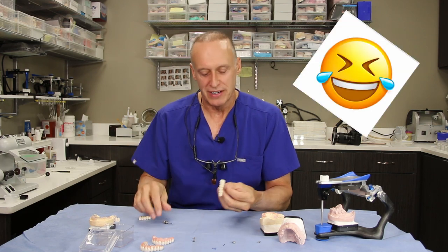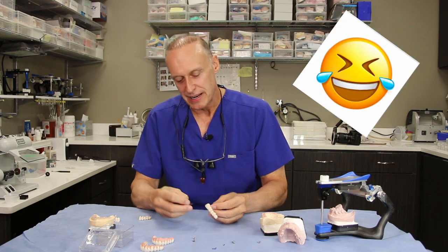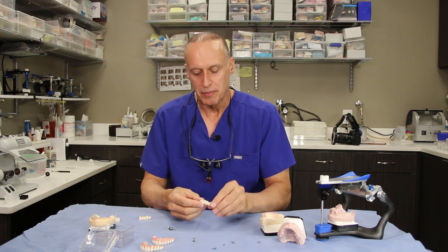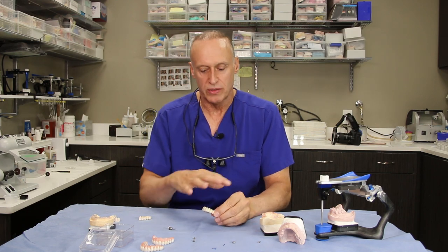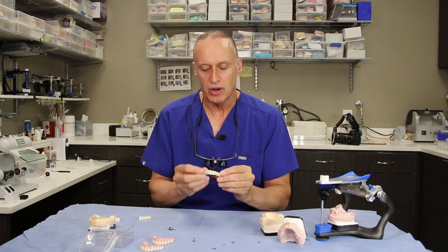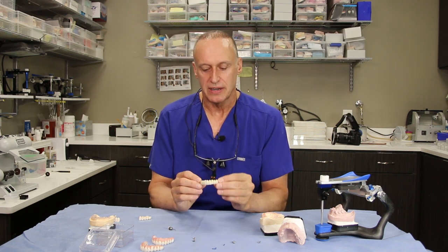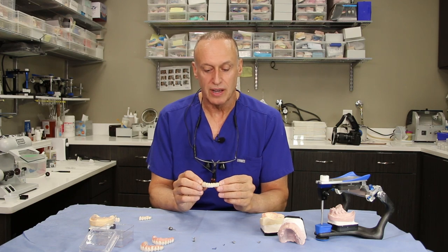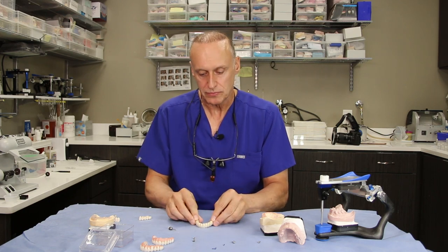I joke with the patients on the day I give them these that the Smithsonian Institute wanted their teeth, but I decided I'd keep them for the patient. But anyway, we'll get to the next step of how we put all this together. That prosthesis — again — if I ever lost my teeth, this is what I'd want. So let's get back to the parts and pieces.